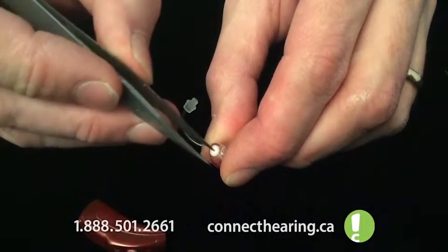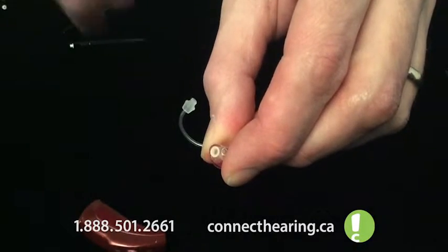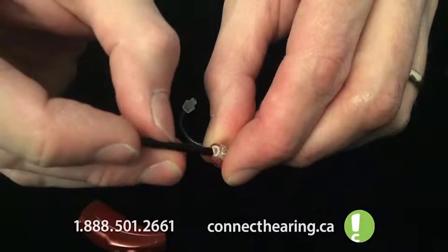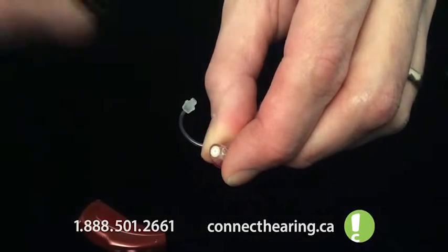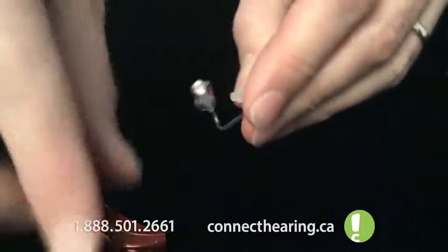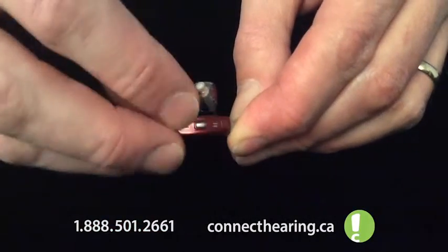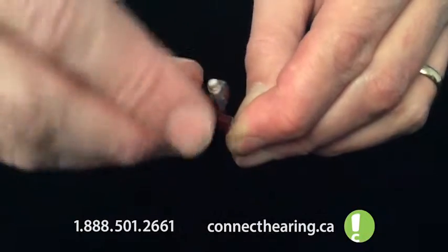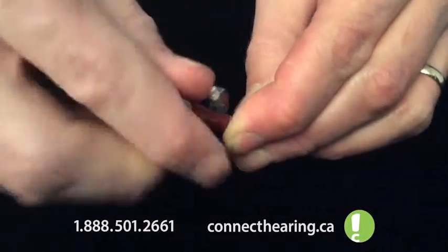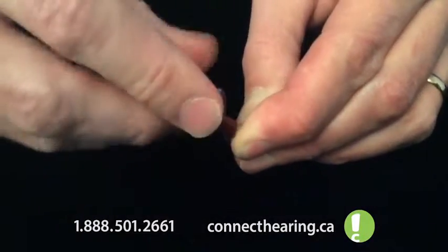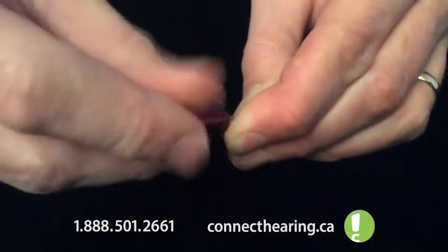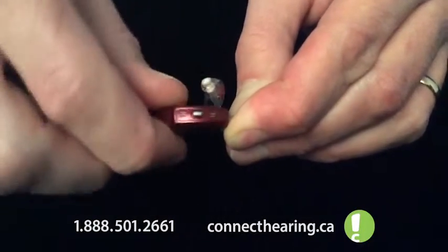So my little tweezers, out it goes. And then with the replacement tip, straight in and out and tap it down with your fingernail. Now to put it back on, put the two pieces together, apply a little bit of pressure and turn clockwise. Sometimes it takes a little bit for the threads to catch, and then about two turns and it's on.